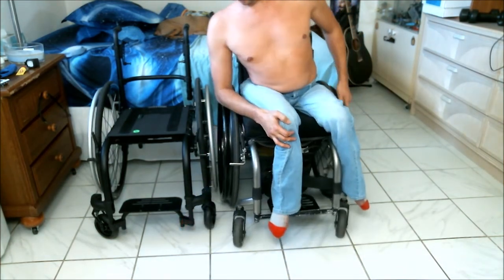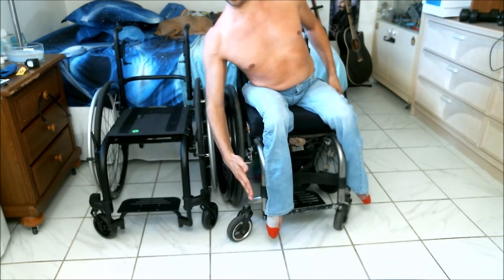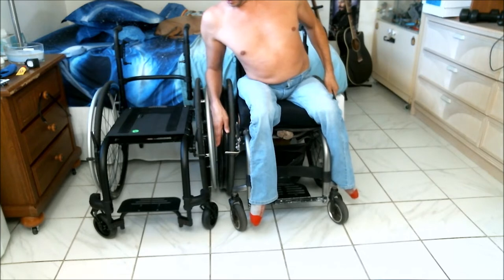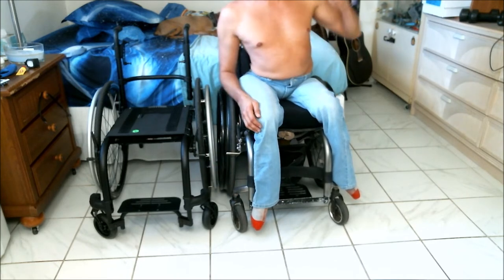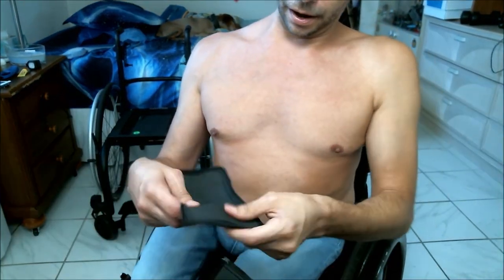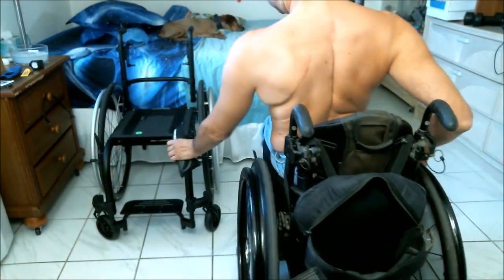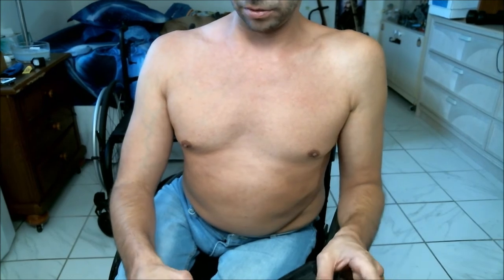The other forgotten issue is the front casters. The front casters on the new chair come out further than on my current chair. Although neither comes out further than the big wheel, my turn radius is affected because they extend a bit more than what I'm used to. I'm wondering if they can be angled in slightly to compensate. Also, there were some pieces on each side of the chair that I just don't like how they look or feel, so I took those off - but that's a minor issue.